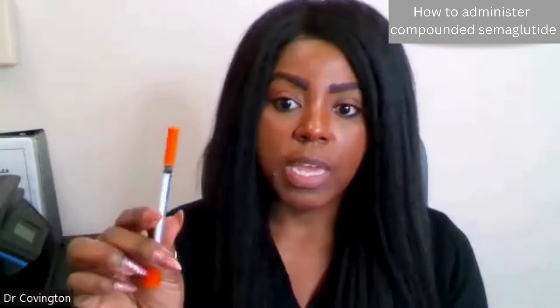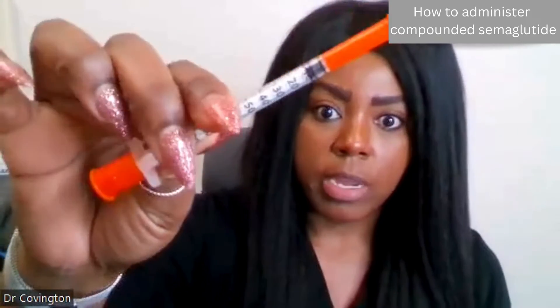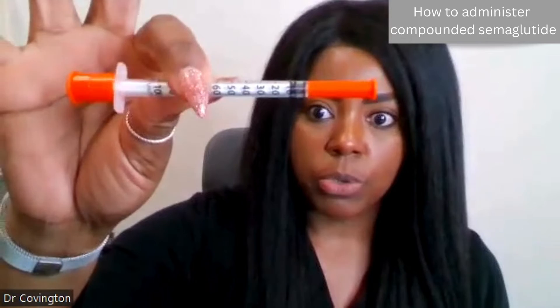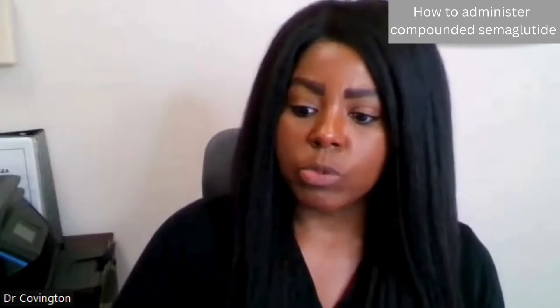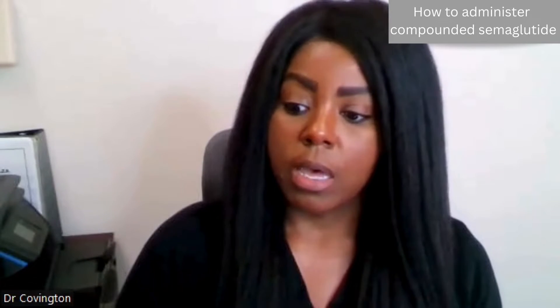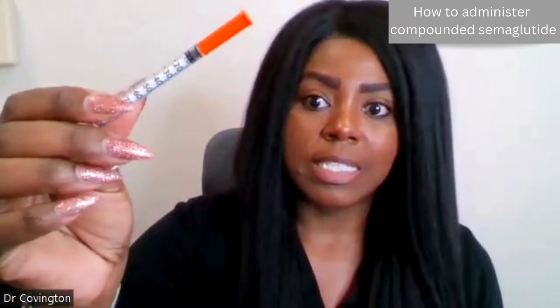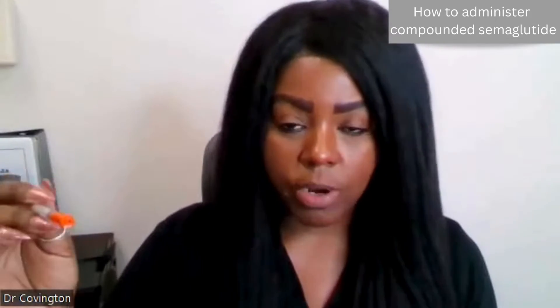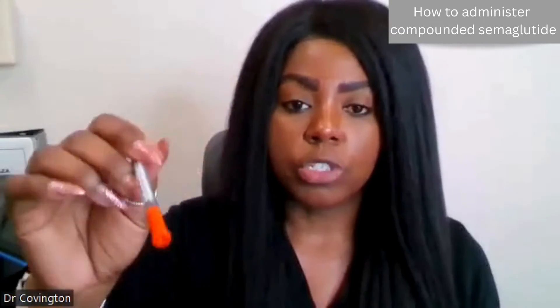I want to take my syringe. Our syringe units go up to 100. This is your typical insulin syringe, basically, and it goes all the way up to 100 because the units are going to change at different doses. It starts — the first thing that's marked is 10. There's also a pictograph of the syringe on the instructions as well.